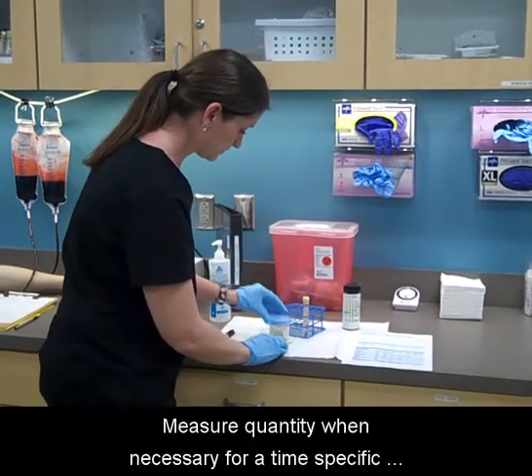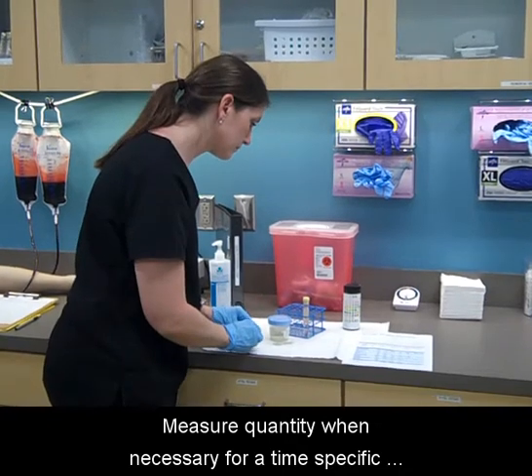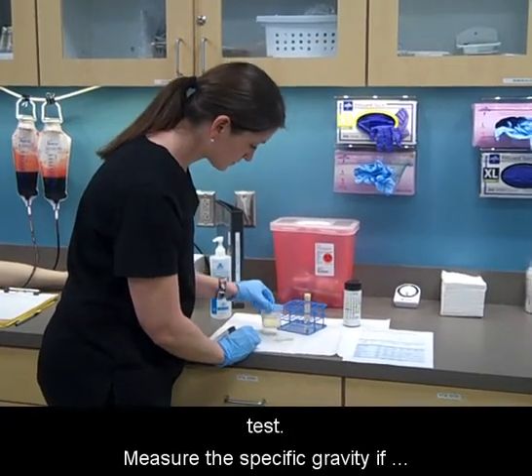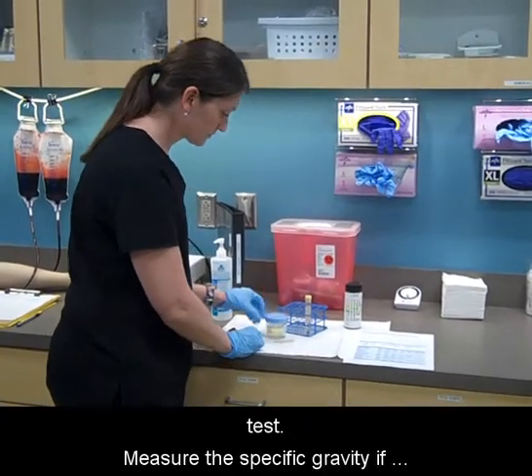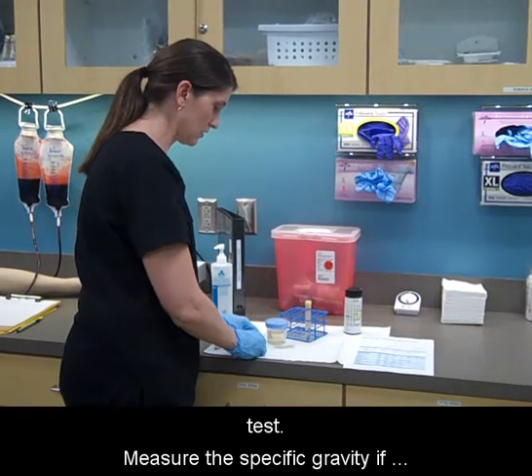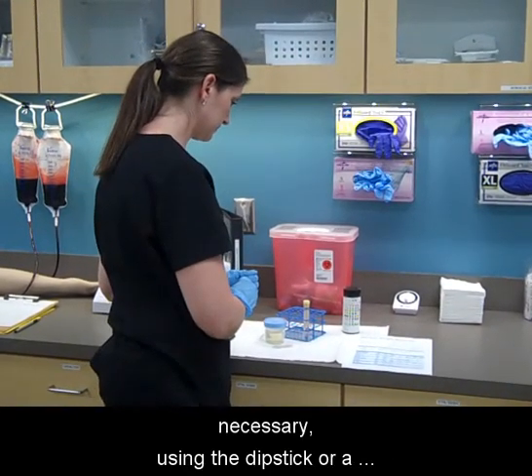Measure quantity when necessary for a time-specific test. Measure the specific gravity if necessary using the dipstick or refractometer method.